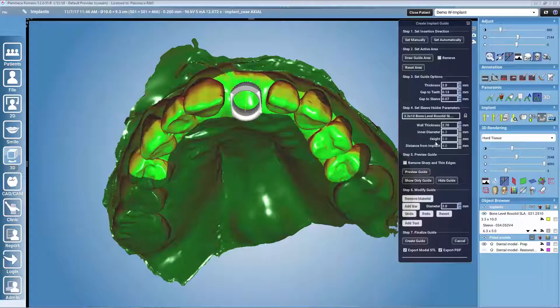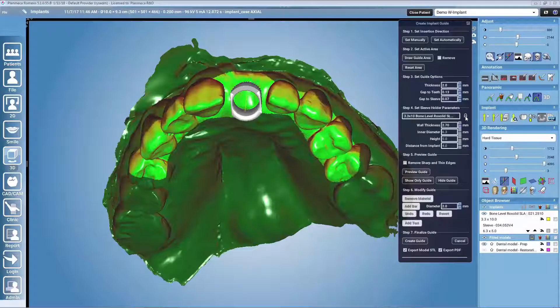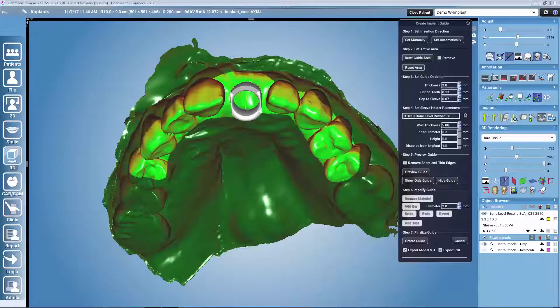In step 4 we have parameters that define the plane area just around the sleeve. Some parameters are locked because they define the hole for the sleeve and should not be modified unless you are an advanced user — though they can be unlocked from the small lock icon. The wall thickness is the only parameter that can be safely modified; it defines how thick the area of the guide around the sleeve will be, and is generally recommended to be a bit higher than the overall guide thickness to give more strength around the implantation spot.